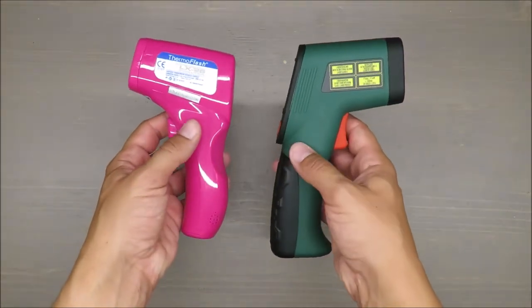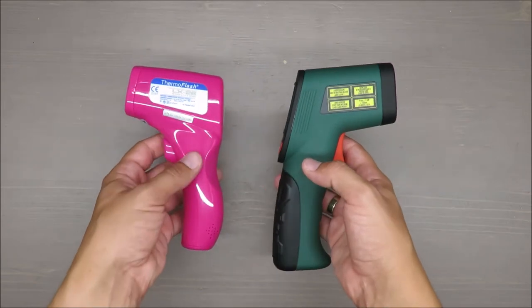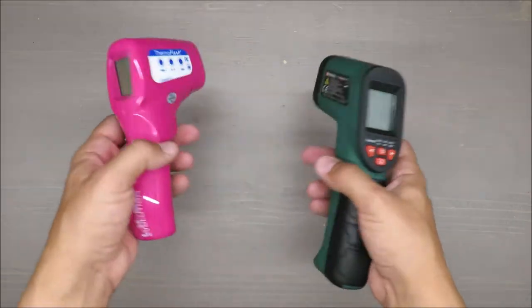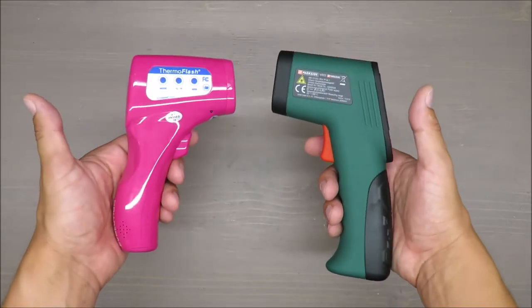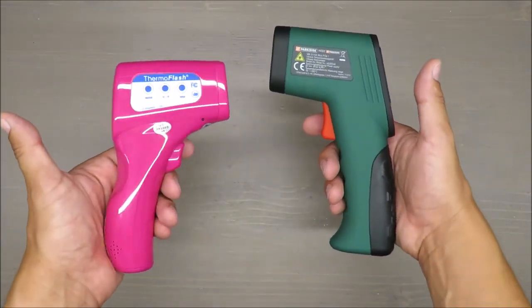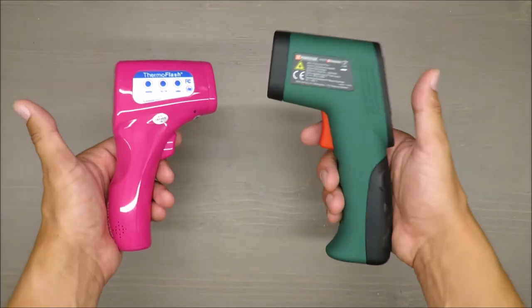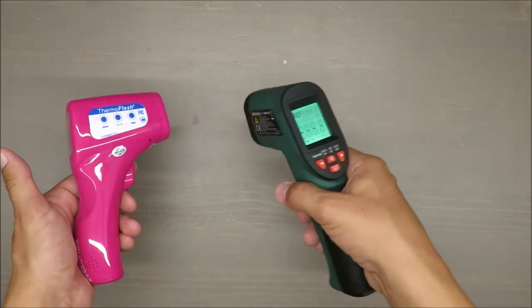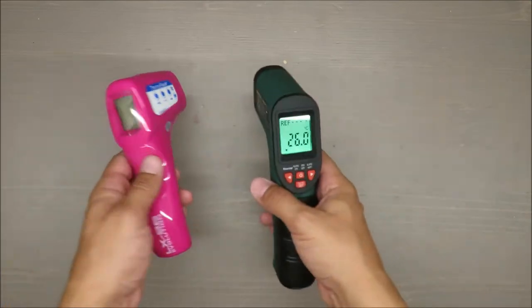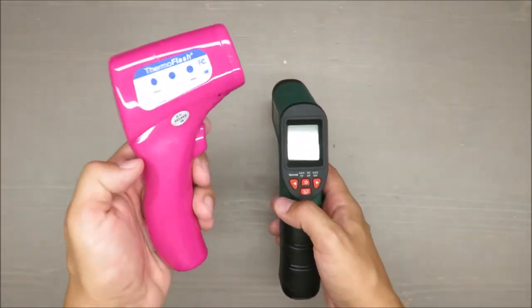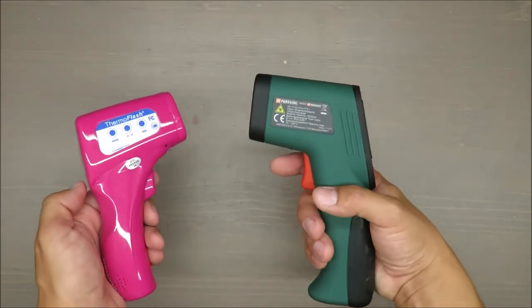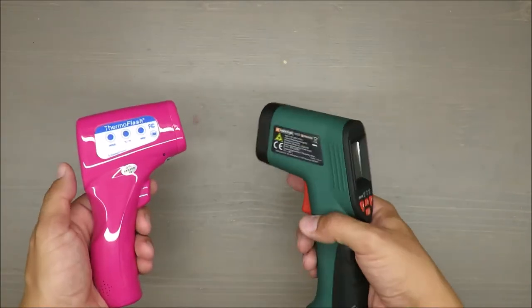The goal of this comparison is to check if you can swap a regular thermometer with an infrared one. We know what's happening around the globe, so it might be added value to be able to check temperature from a distance. This thermometer needs a few centimeters away, while the infrared works from a meter away without any problem.